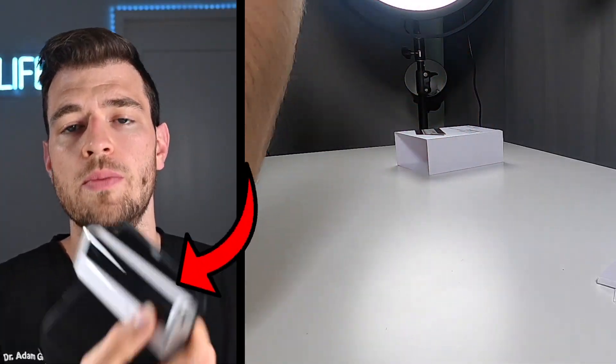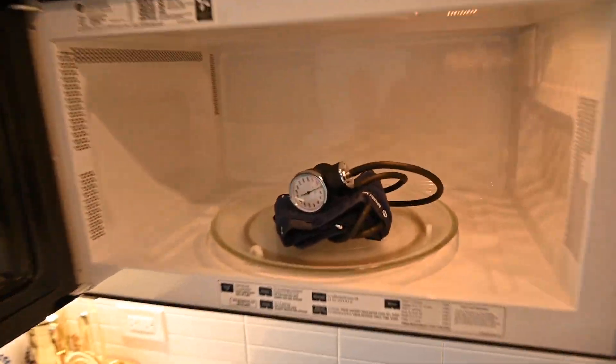You just hold the power button down to turn it off — pretty easy. I didn't read any of the instructions, but that was not hard to use, not hard to figure out, and gave me a blood pressure reading quite quickly. Now there's only one way to check how accurate that was, and that's to do it manually. Let me grab one and we can find out.